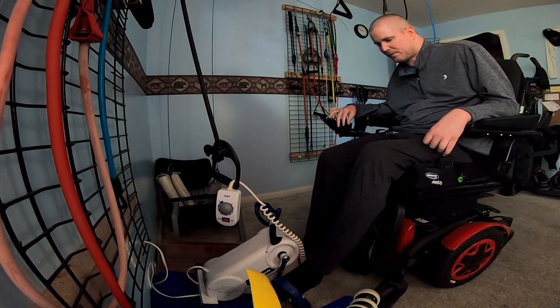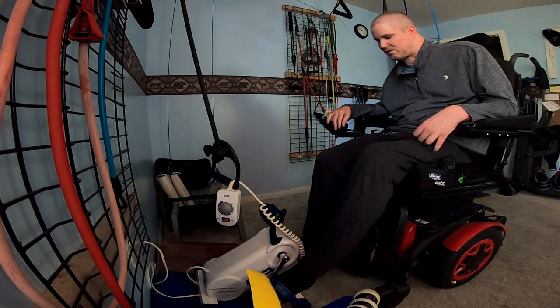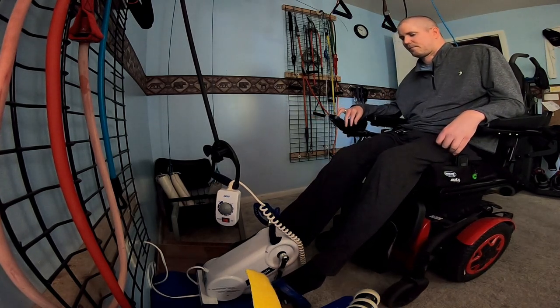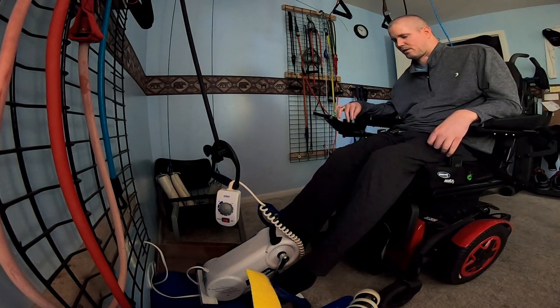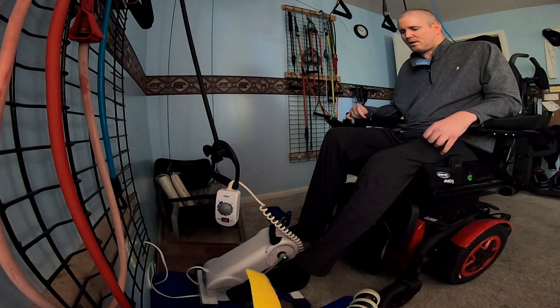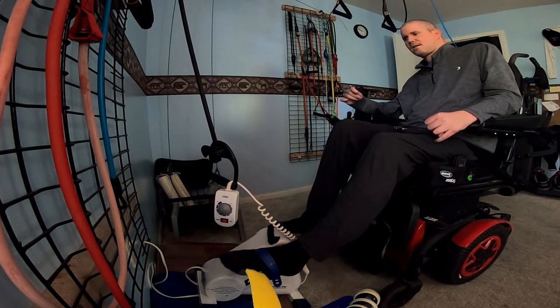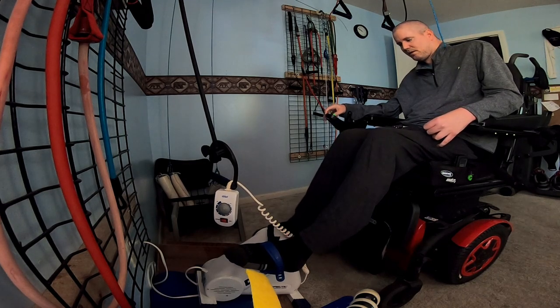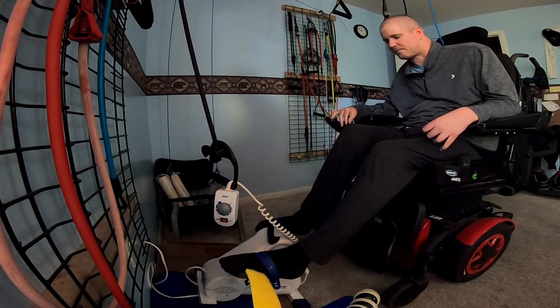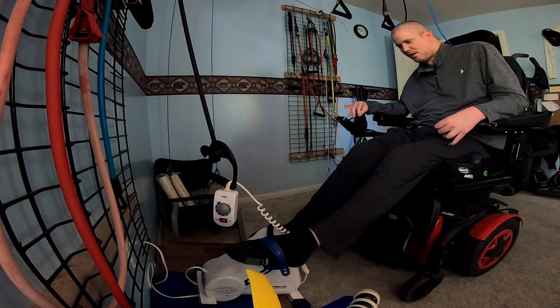I only put it there in a safe room, because I sometimes use that for it to do like presses. Not often enough. Let's see if we can get the right way in there. Not too bad for a first try. Not in there as snug as I'd like — I'll see if I can adjust it. Might be okay.